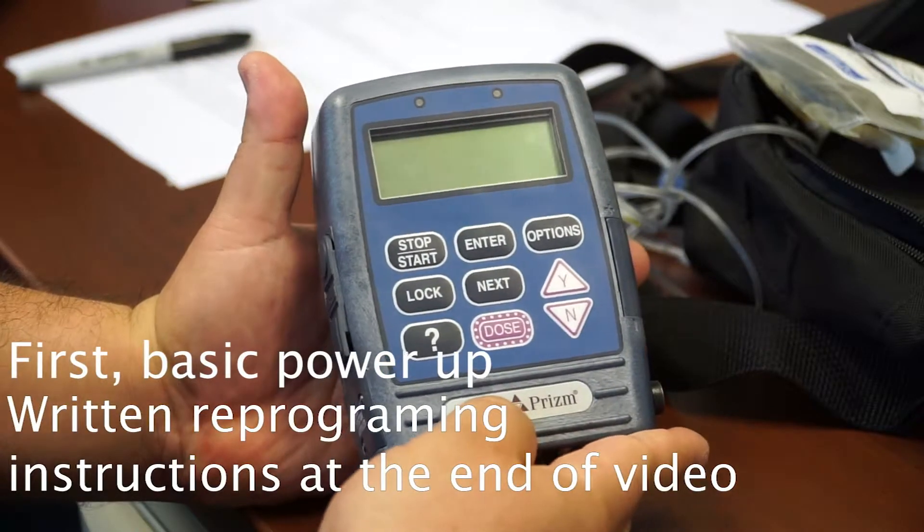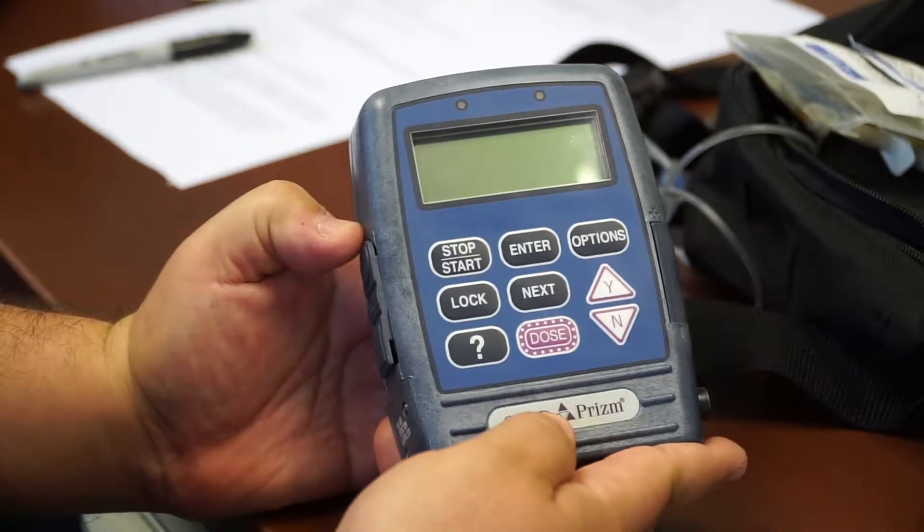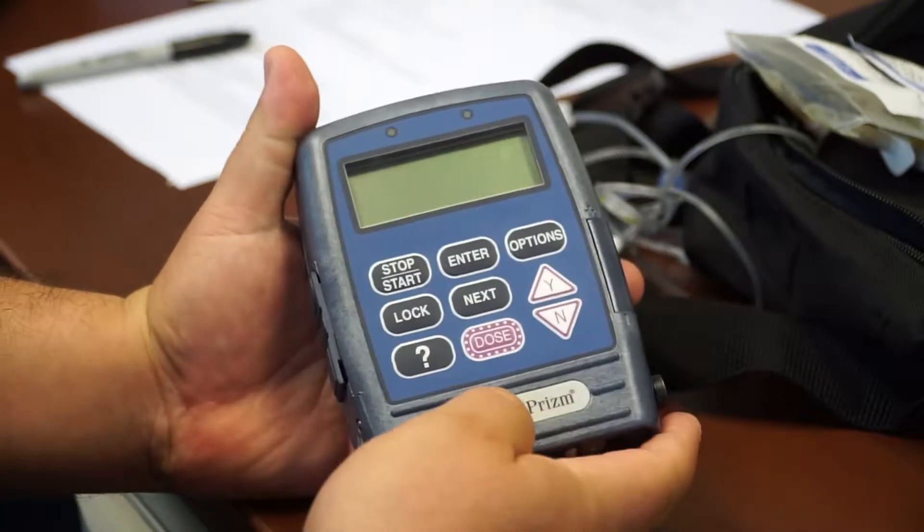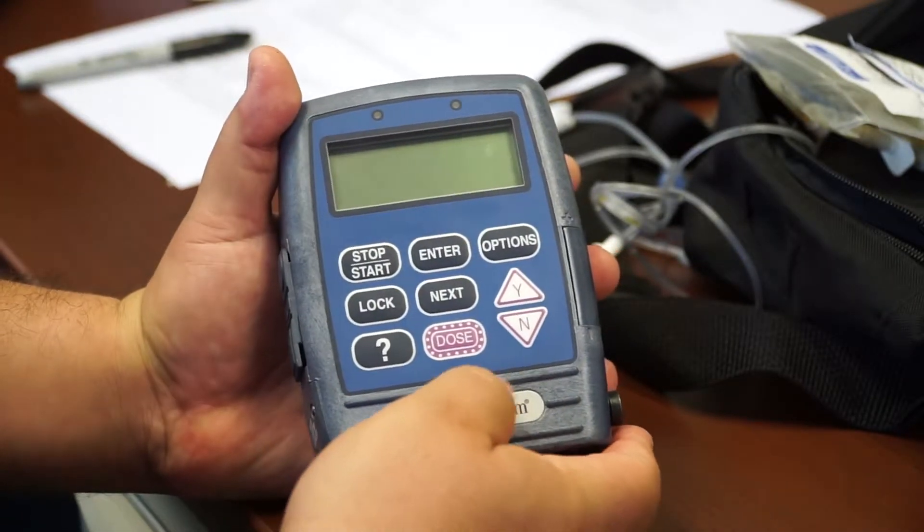Most of these CADD pumps have a power cord, but typically the pharmacy does not send the CADD pump with a power cord. Instead, they provide a battery or a whole pack of batteries.